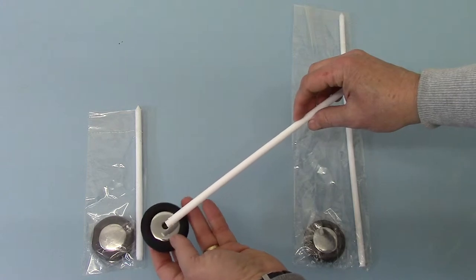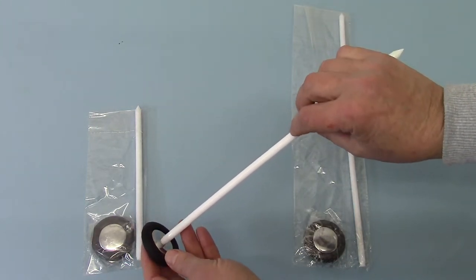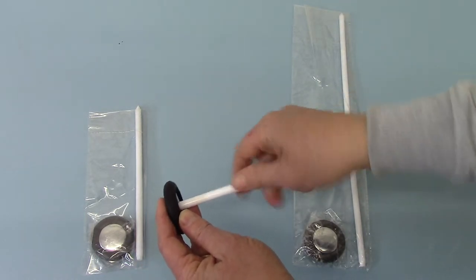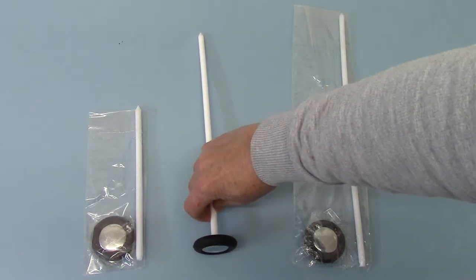They also have to have a robust size screw head to go into the head on construction. This is simply a screw in, screw out version. It does remove after it's constructed like that.